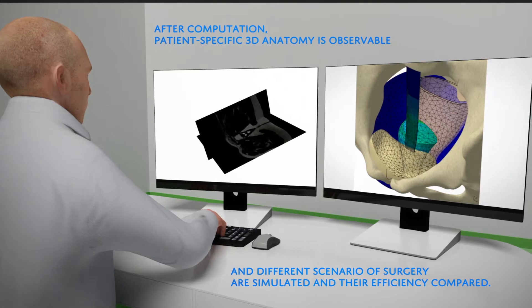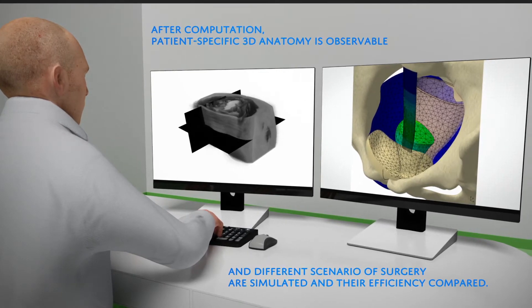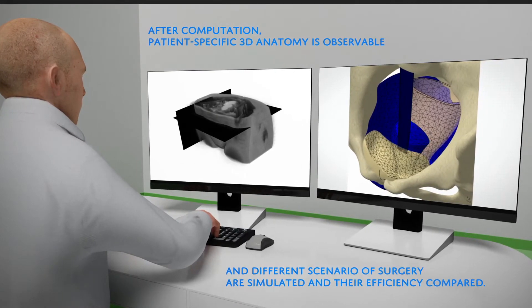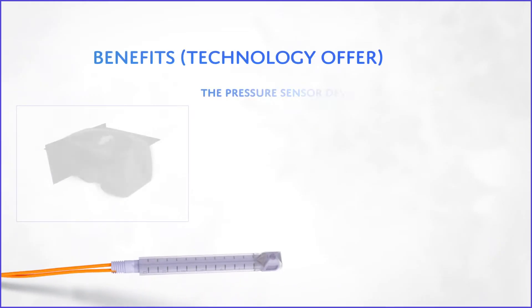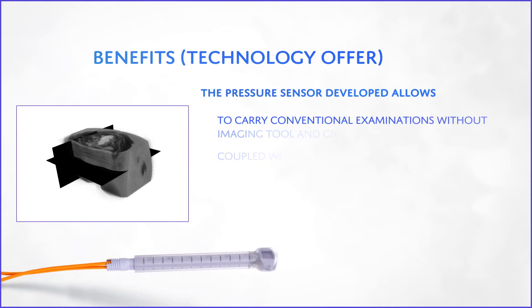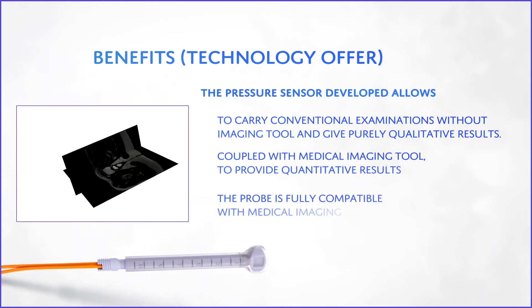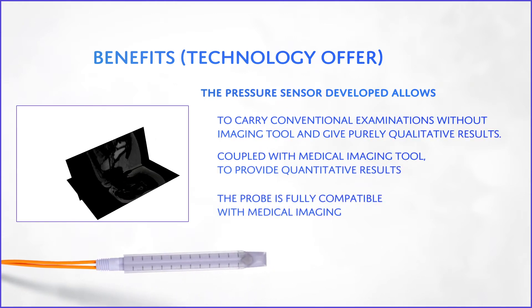Requested evaluation of the efficiency of the surgical techniques are proposed to the surgeon for helping to make its own decision. The pressure sensor developed allows to carry conventional examinations coupled with medical imaging tool to provide quantitative results.